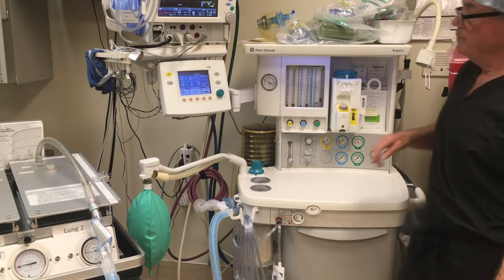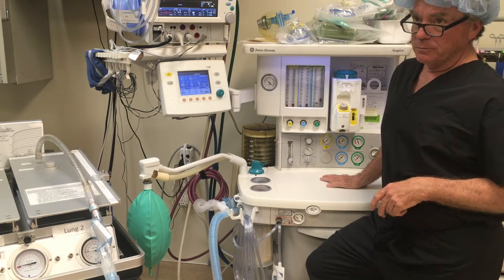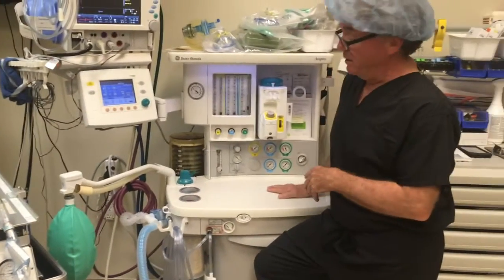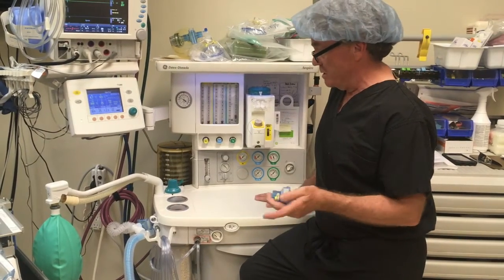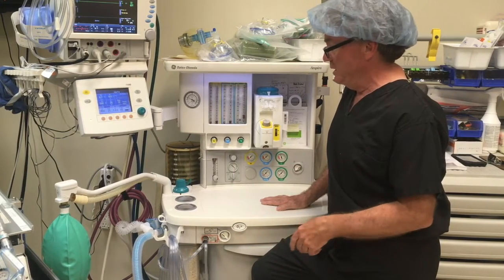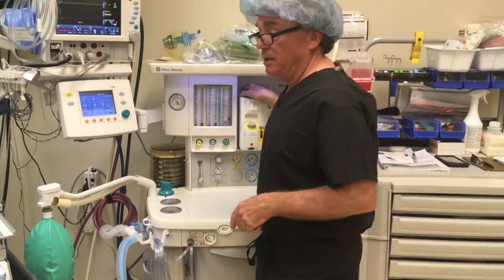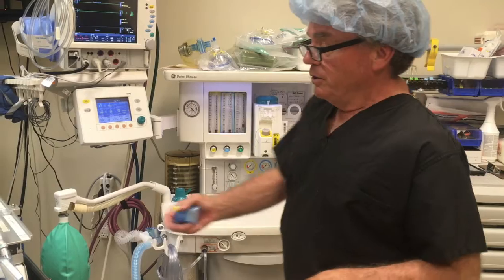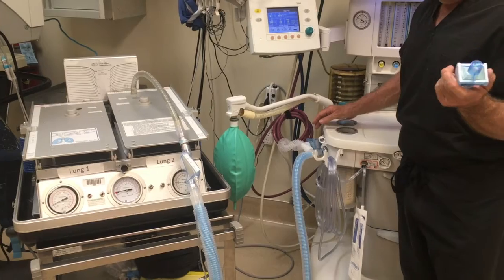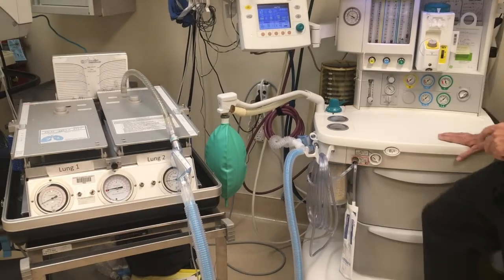Okay, Clay's going to talk about setting up the Omeda anesthesia machine to be able to ventilate one of our COVID-19 patients. So to begin with, it's just a standard anesthesia machine check that you would do before you used it for every single patient. Check the bellows, make sure that there's no leak. You are not going to have the sevoflurane on there. You're going to have an HME filter connected to the endotracheal tube, and you're going to have a standard Pall filter, which is used quite commonly, connected to the expiratory flow.